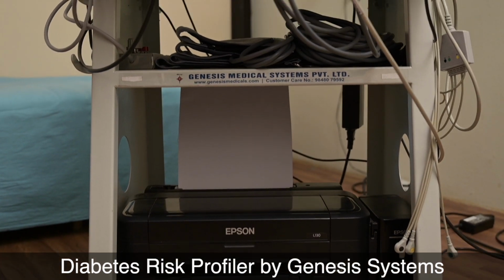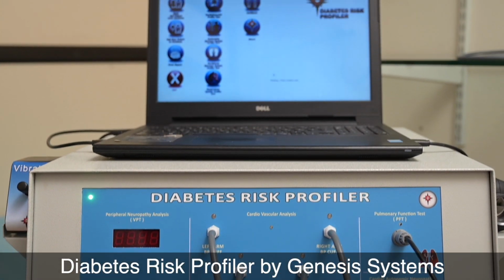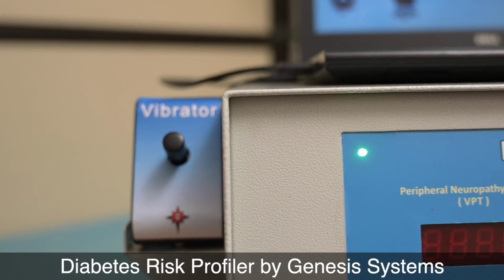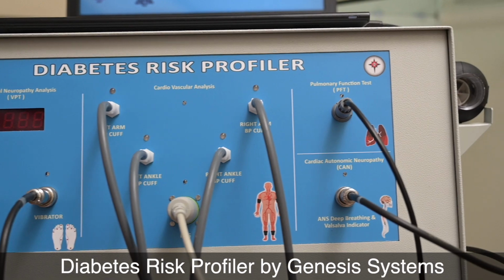For the first time, there is a convergence of all these important tests in a single device, the Diabetes Risk Profiler. As demonstrated, all the tests put together measure more than 60 parameters.